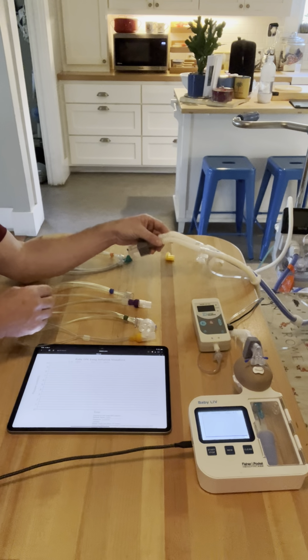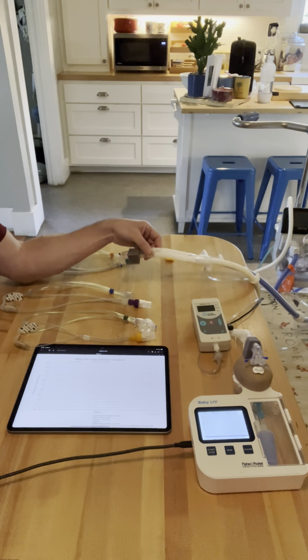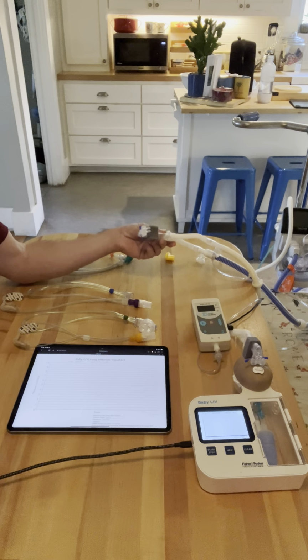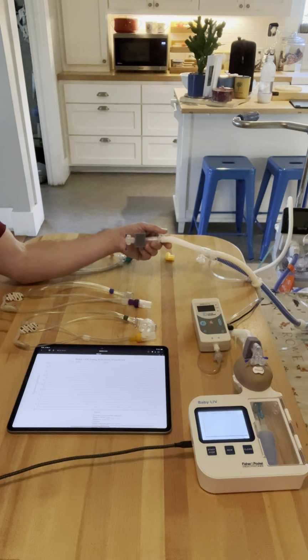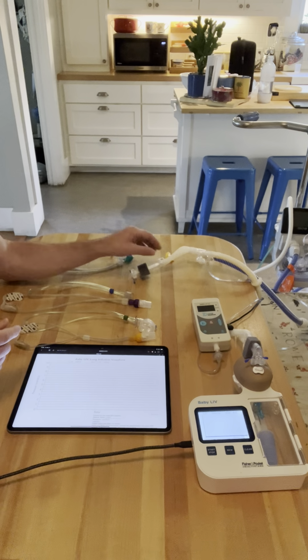So starting off, when you look at a nasal tubing or a CPAP interface, and when we say CPAP, obviously it's continuous positive airway pressure. When you want something that is a constant on your CPAP, meaning there's not any variability, the pressure you set is the pressure that's getting into the baby.